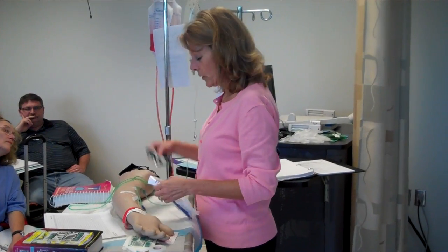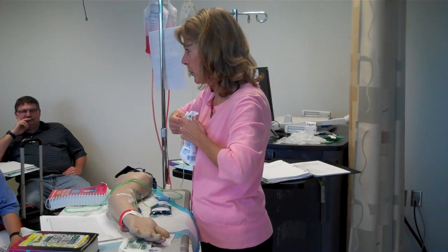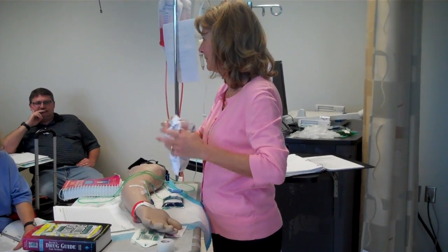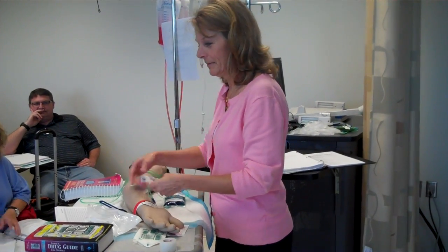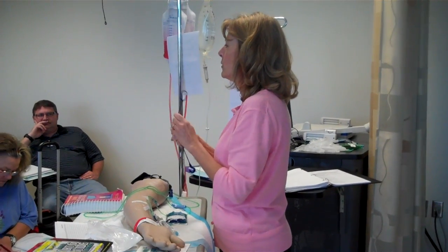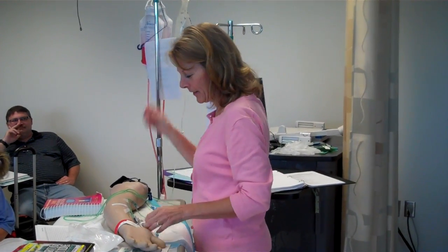So what I want to do is just take my bag, go ahead and open up my secondary tubing. And you guys have all done primaries, right? What are the 3 P's Kathy told you? Poke, pinch, and prime. You just say pork? I don't think pork's in there. I'm going to hang that up so I don't forget it.